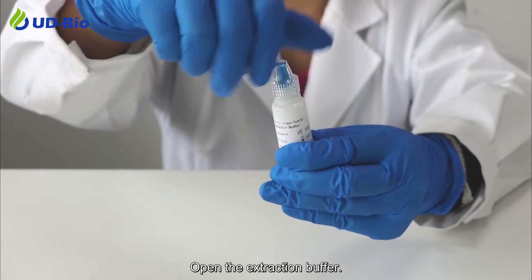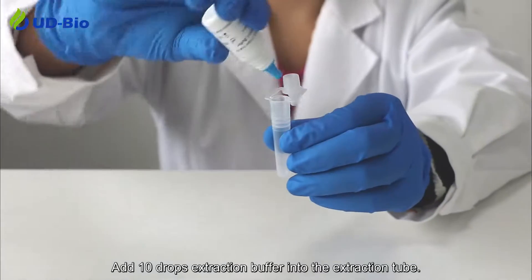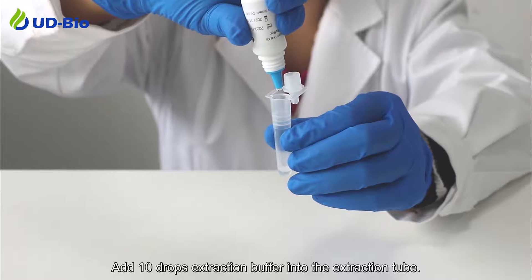Open the extraction buffer. Add 10 drops of extraction buffer into the extraction tube.